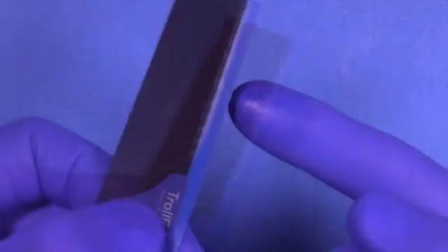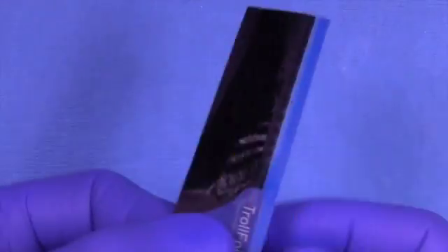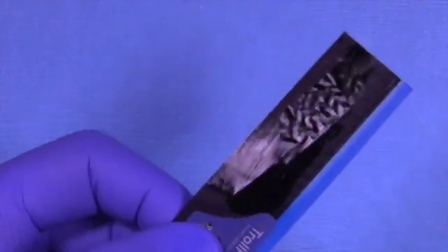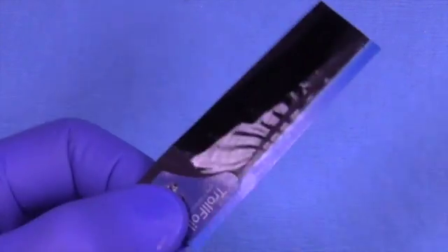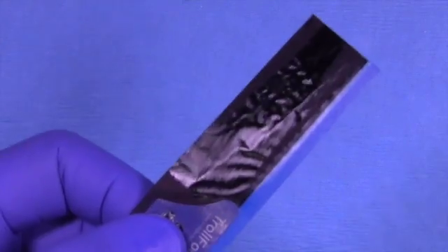Then when you place the paper in the mouth and check occlusion it will mark incredibly well. Sometimes if everything is really polished and you can't see any marks, you can put a very very thin layer of vaseline on the paper like this. This works for all papers out there.